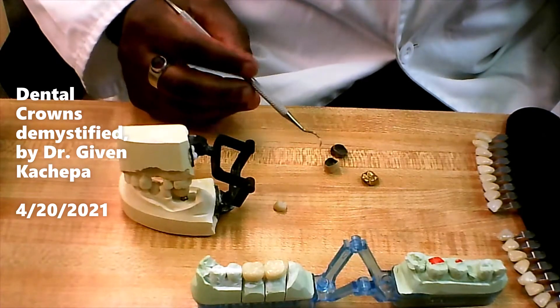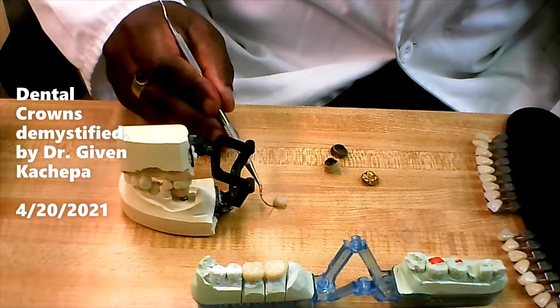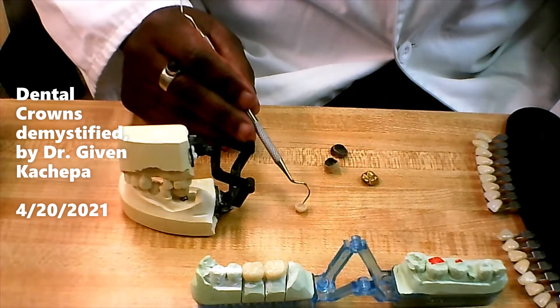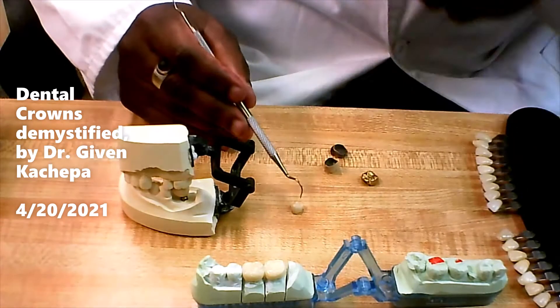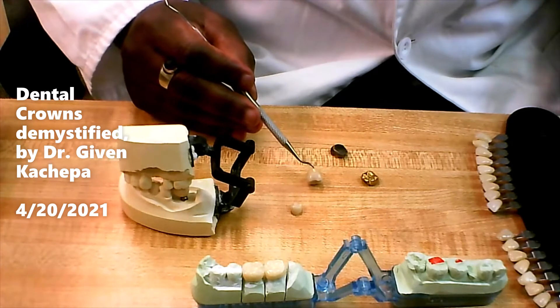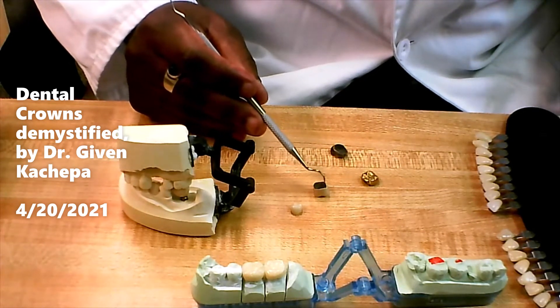I have a few selected dental crowns here. I have a premolar tooth — you have the hollow part here and then the top part on the other side. Here's a porcelain fused to metal crown: it's got porcelain on top and metal on the inside. This is the hollow part that goes around the tooth.